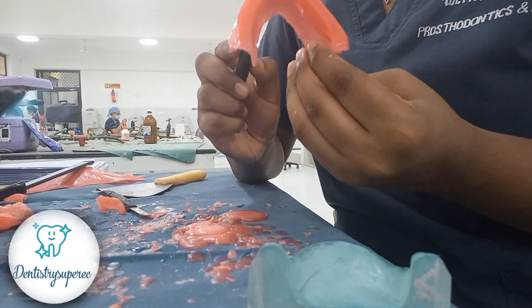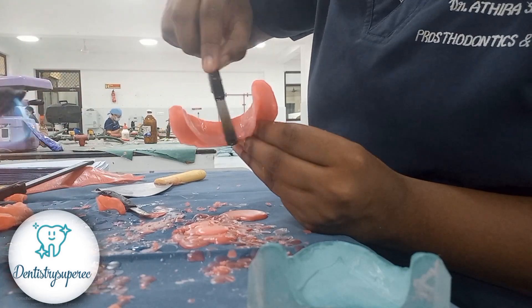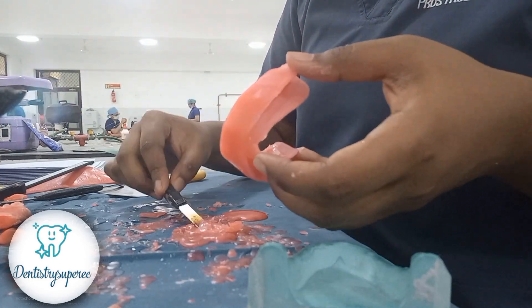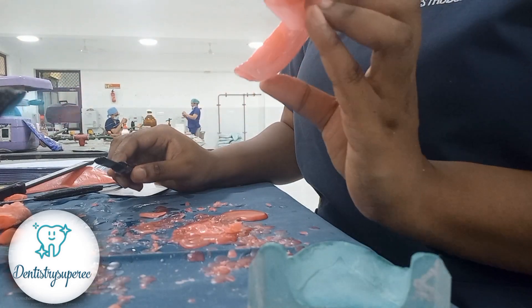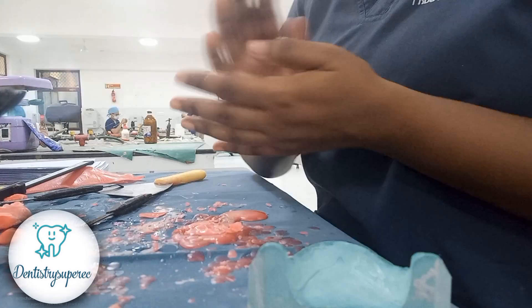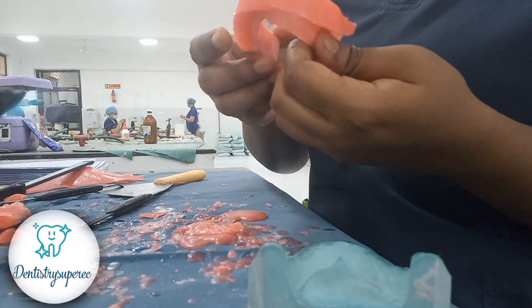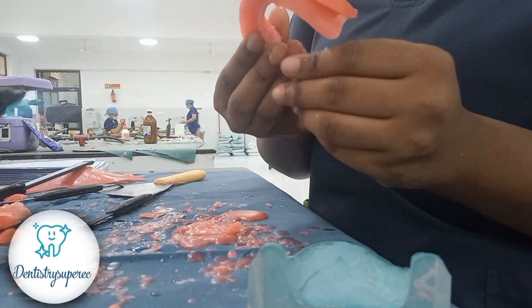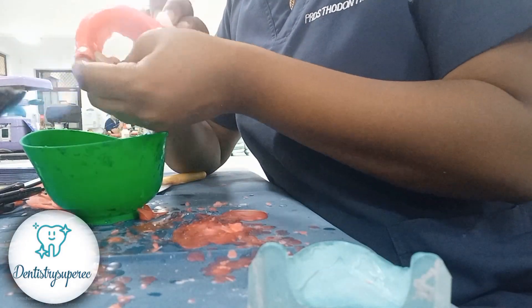Once again, refining with one stroke, then chip blowing. Then the same cotton method: dip a large amount of cotton in water and just run it through the occlusal rim surface — never give pressure, don't rub, just run it through. I've now placed it in a bowl of water. You can see how perfectly without any air bubbles we have got both rims. Ten minutes spent gives a super satisfying occlusal rim that will impress even your guides or teachers. Chip blow again, then with very slight — almost no — pressure, just touch it through the occlusal rim.